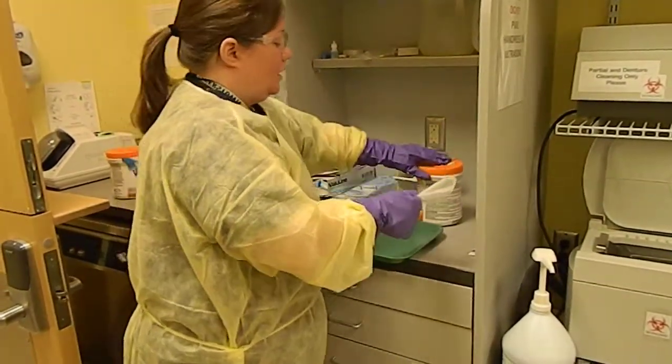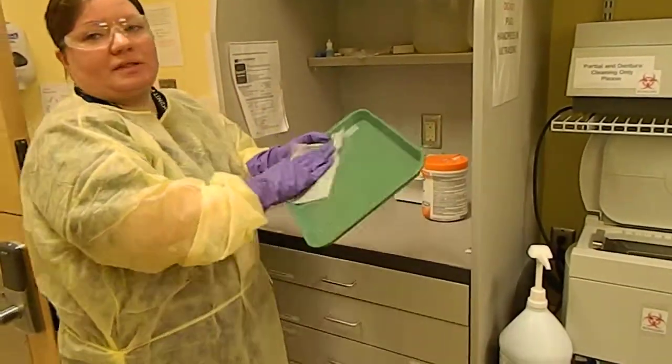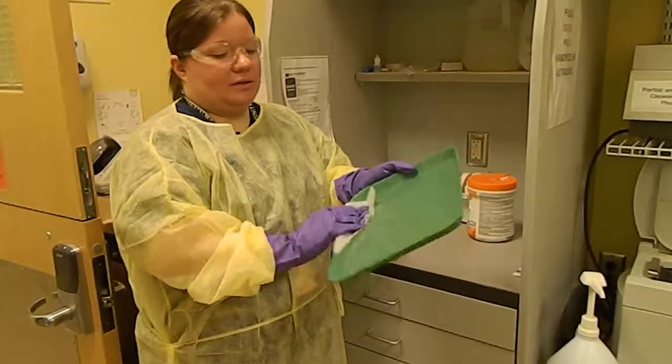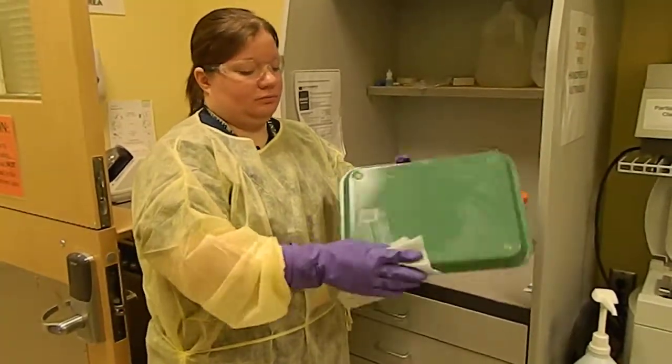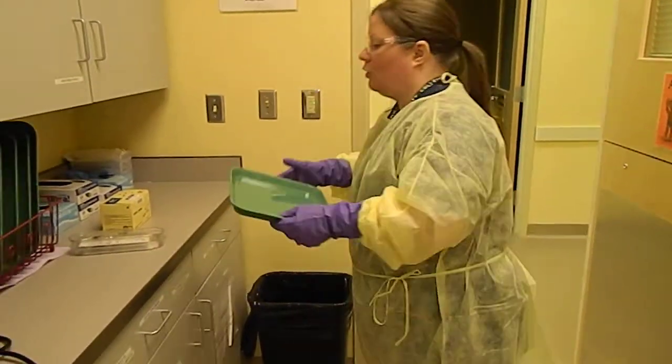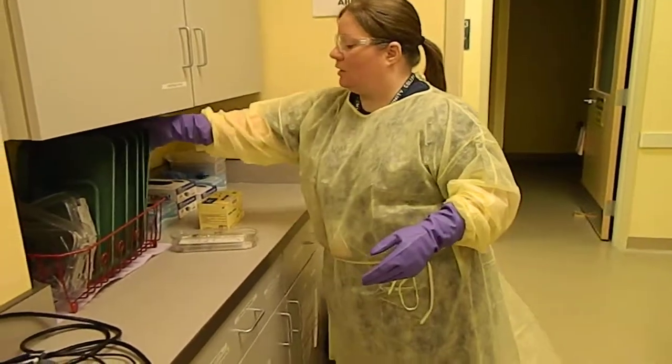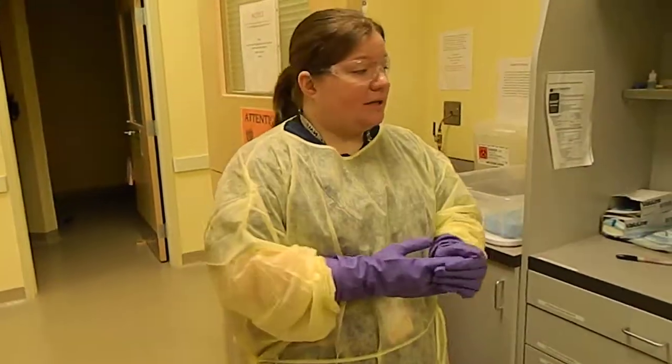I can get it. There we go. And make sure to close that back up so they don't dry out. And I'm just going to wipe this down. Nice and good. Front and back. I'm going to throw this away. And I'm going to tuck this in here to dry. And that is pre-sterilization.